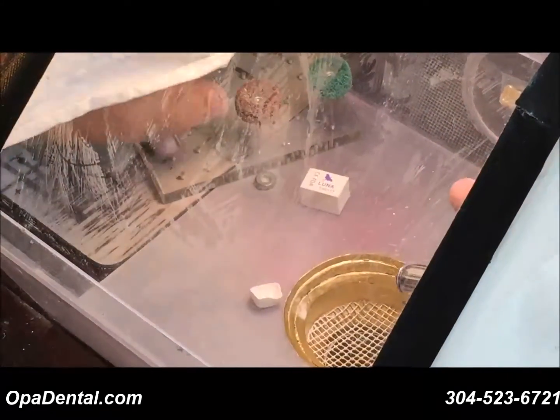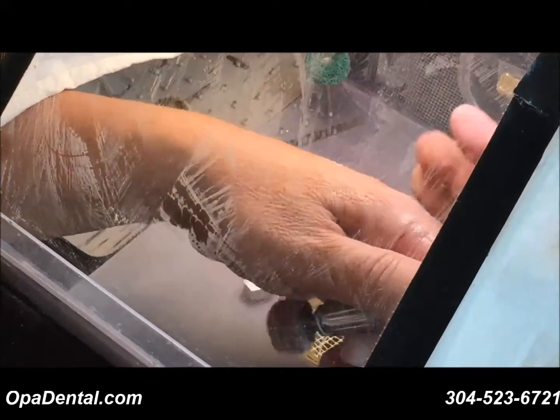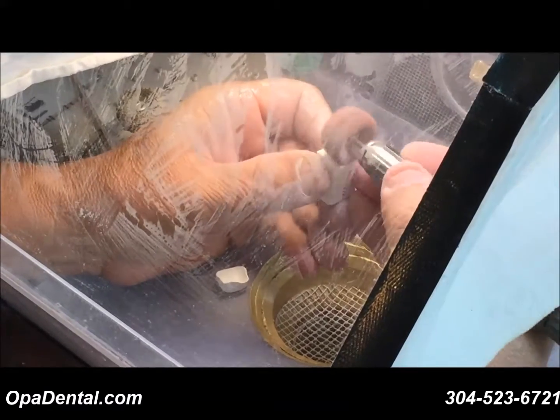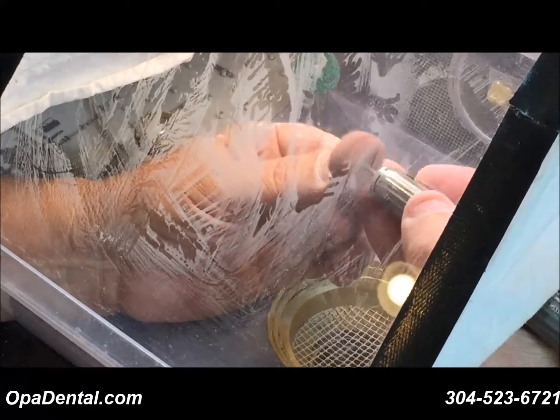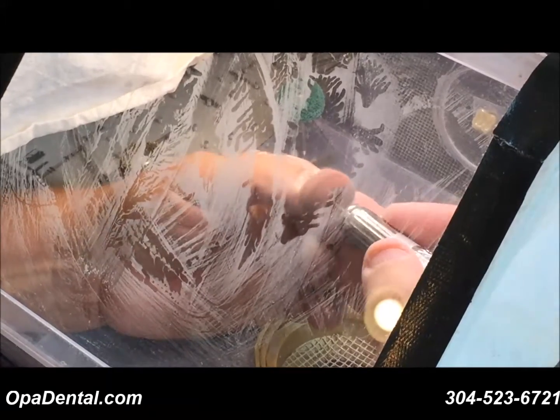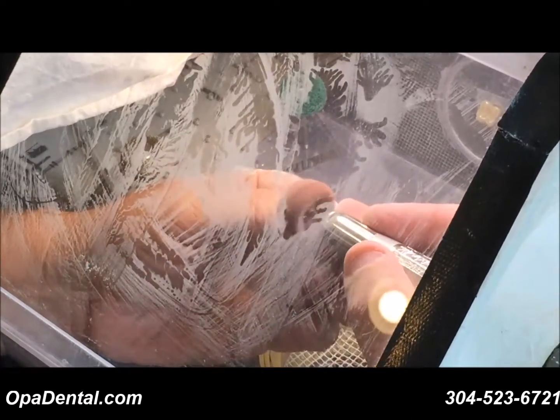The medium is maroon in color. Initially, you may see a little bit of color going onto the zirconia, but you can just dress it up and that takes that initial color off. It does burn out in the center, so don't worry too much about it. The medium is nice — sometimes I just use the medium. I'll give you an example of that in a minute. It's very fast and easy to use.